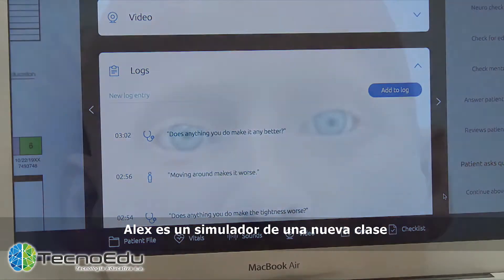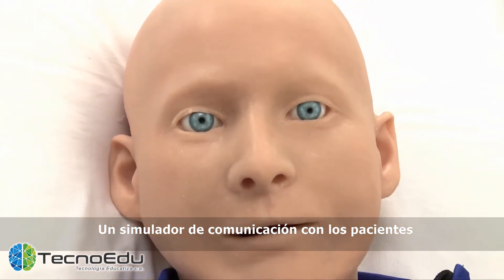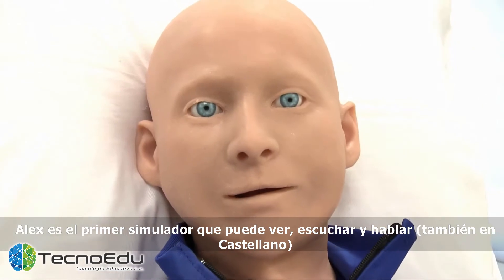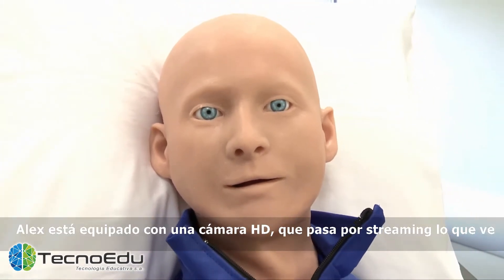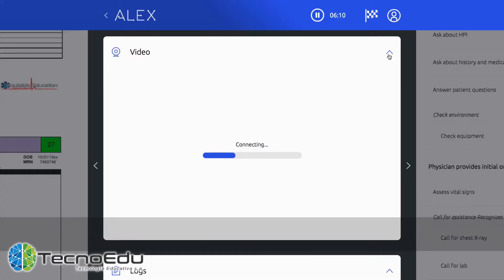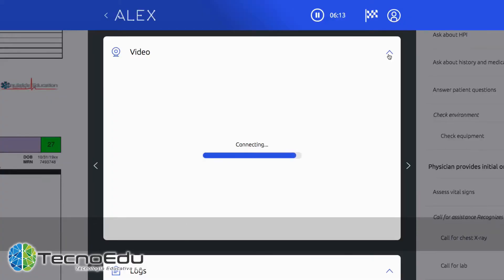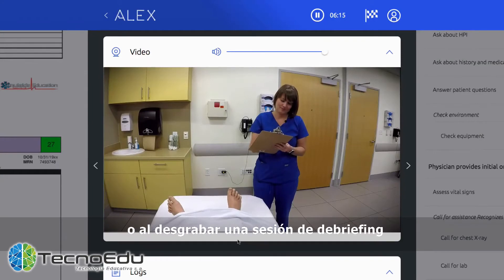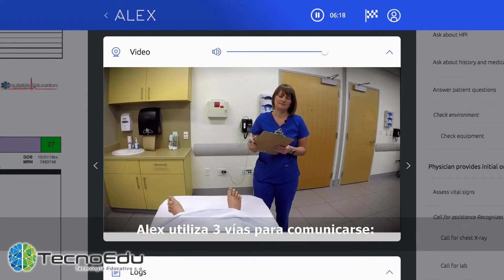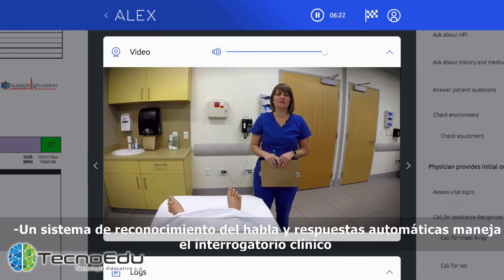Alex is a new type of simulator — a patient communication simulator. Alex is the first simulator that can see, listen, and talk. Alex is equipped with a high-definition camera streaming low-latency video with the iris cam, allowing the patient perspective view remotely or during a debriefing session.